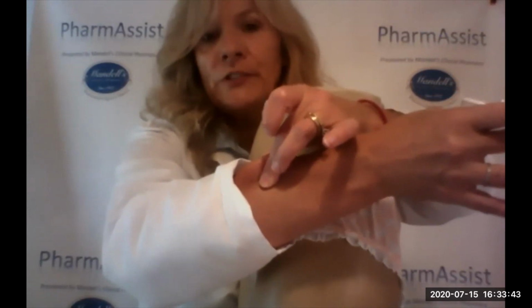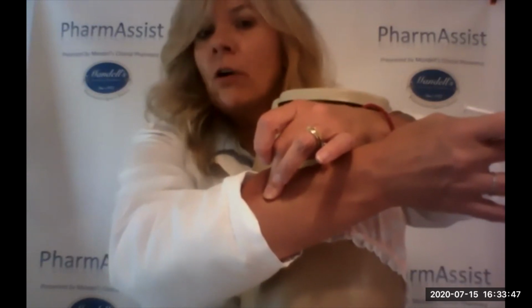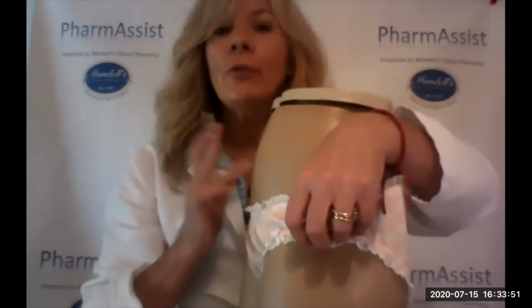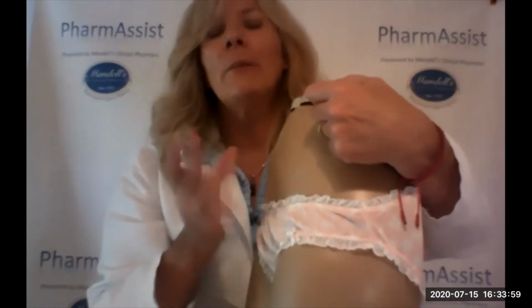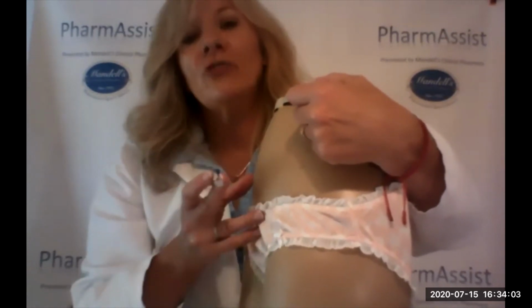You could get bruises. And if you get bruising, it occasionally happens to people when they get blood drawn or shots given. It's a-okay. You just want to make sure you don't administer another shot in a bruise. If you get a bruise, let it heal. But the key is sometimes if I see somebody that might have multiple bruises, I might have them show me the technique of their pinching, just to make sure that they're not pinching too tight.